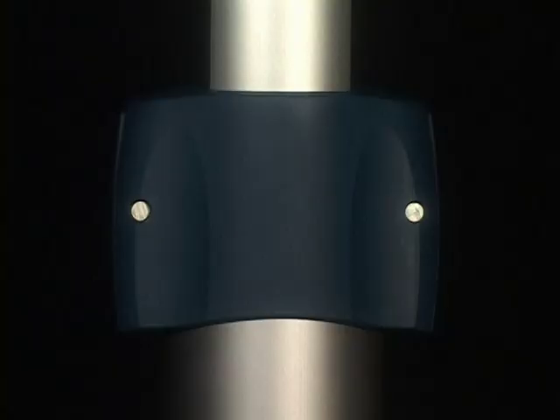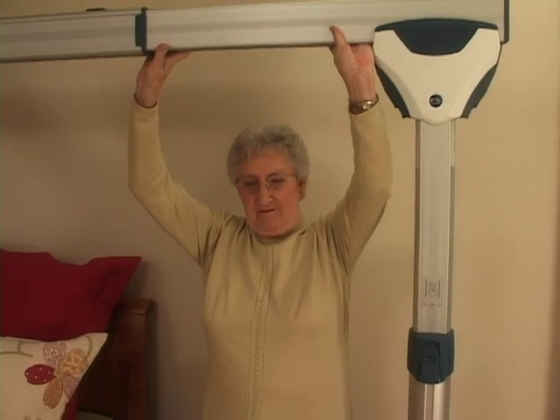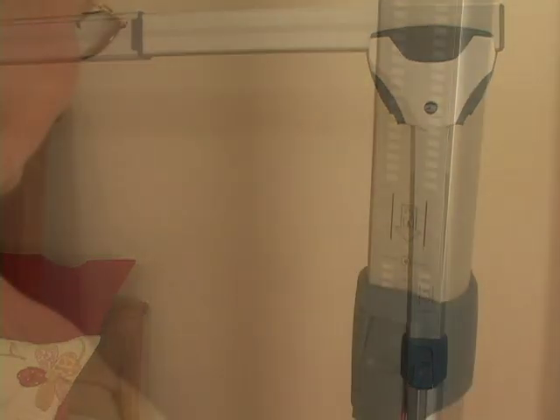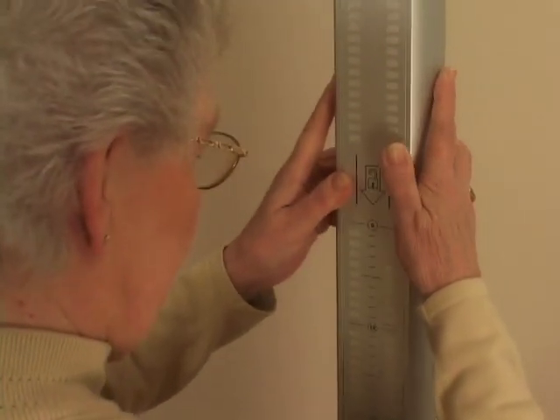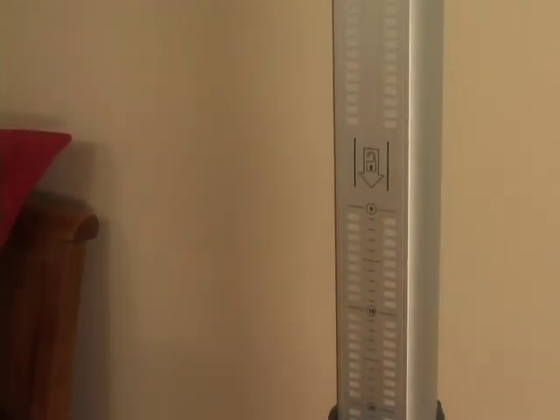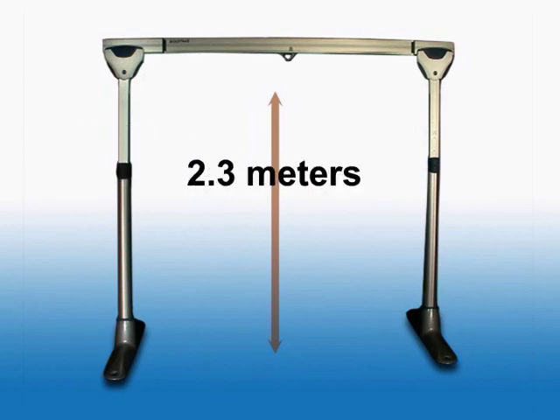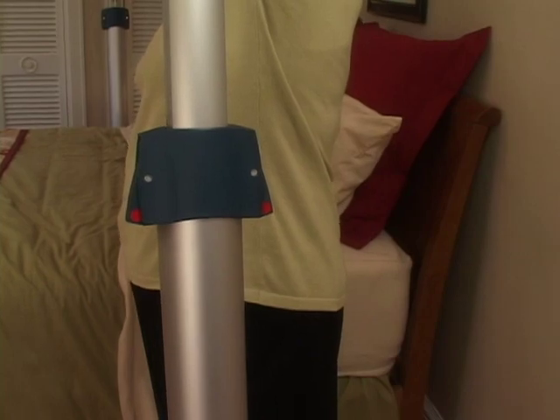The rail can be extended up to a width of 115 inches or 3 meters — more than enough to span a king-sized bed. Now you can adjust the post height for a perfectly level rail. Open the clamping collars on the posts and raise the rail to the appropriate height. A special one-way locking mechanism ensures that the post cannot retract on its own. The system can be adjusted to a height of 91 inches or 2.3 meters, just short of the 8-foot ceiling found in most homes.